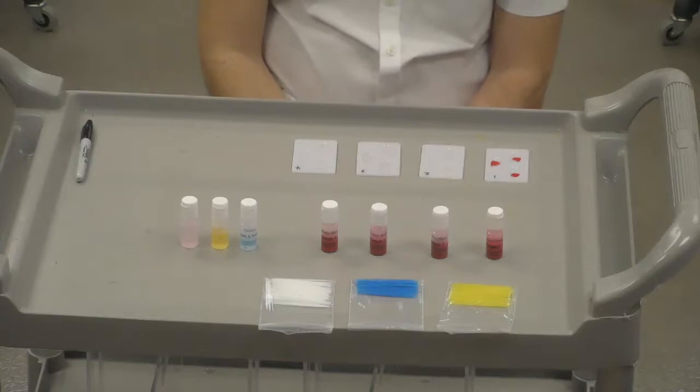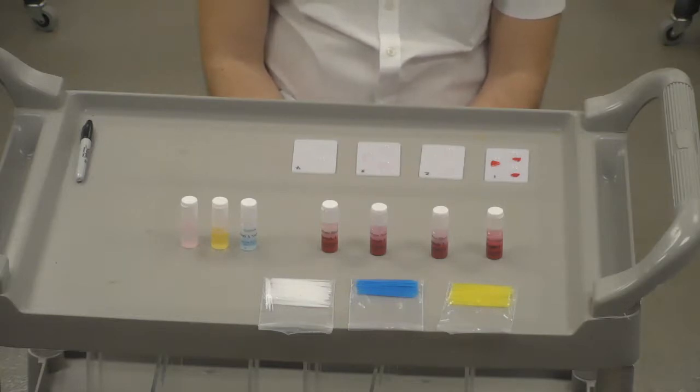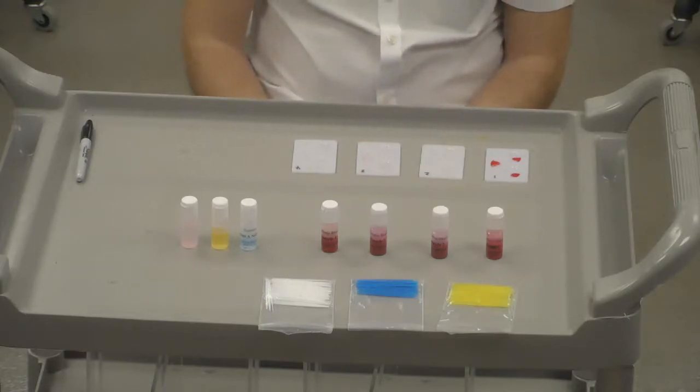Then we're looking for what is called an agglutination reaction. This is more or less just clumping. Where we see clumping, it indicates that that specific antigen is present. So if you have A antigen and B antigen and nothing occurring for Rh, then most likely that particular sample is AB negative. That's the blood type. Do not confuse blood typing with blood transfusion. They're related, but they're two separate concepts.